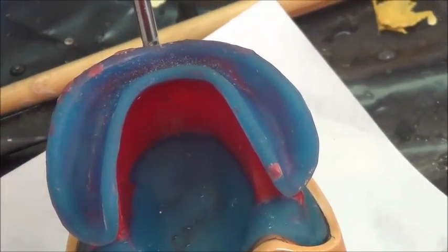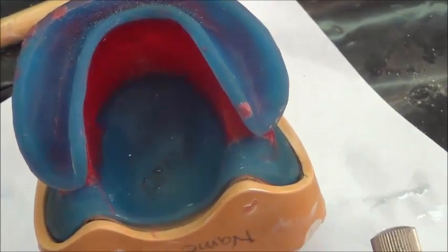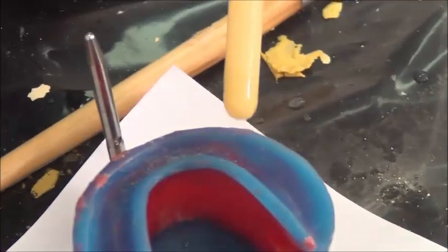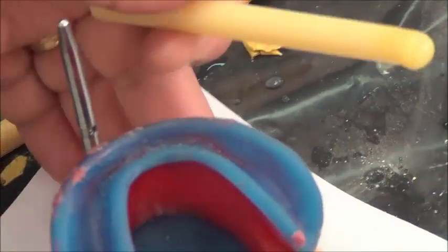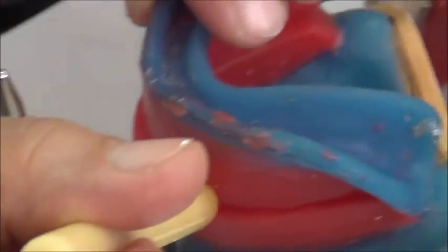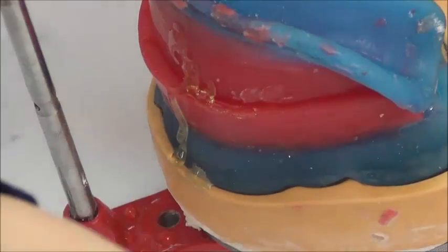But because it is a bit light and it can move around, we need to fix it into place, making sure that it will not move while we're placing the cast and mounting the procedure. So we use the sticky wax, we heat it on the flame, and we let it drip in between the two members. After I have centered it, I use my sticky wax and let the sticky wax drip into place, fixing the upper and lower members together into location.